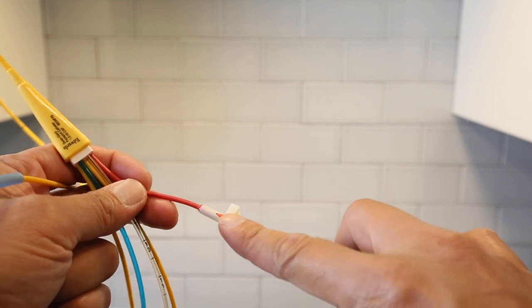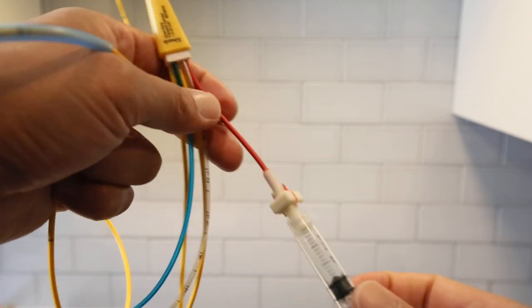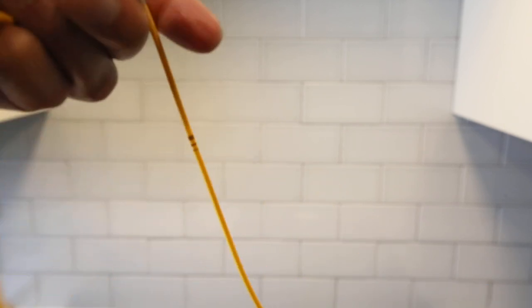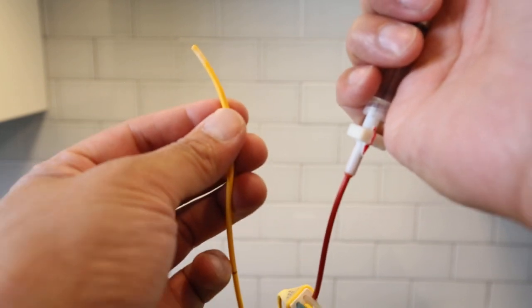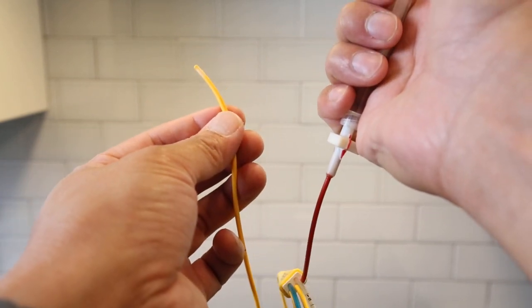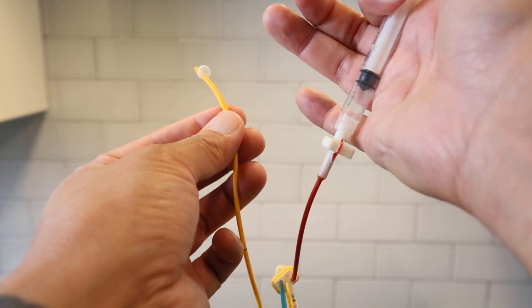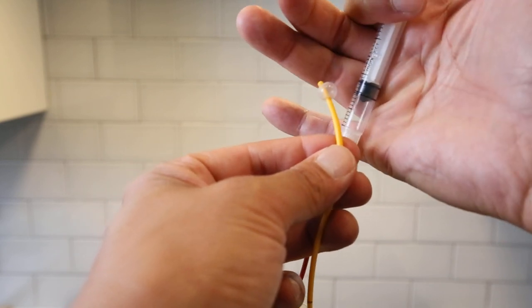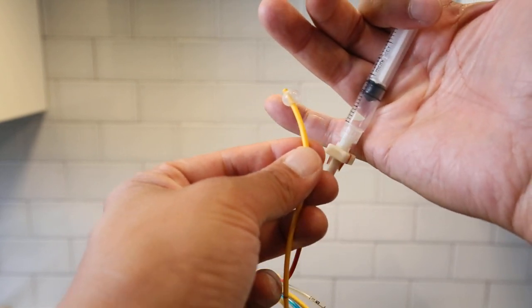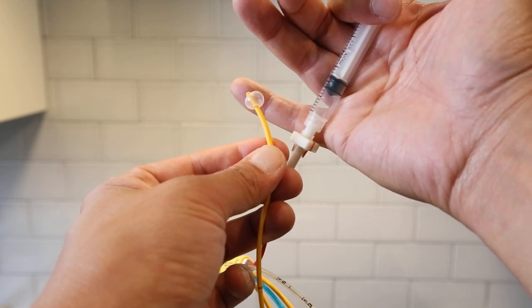This one goes with the balloon. So as I inject, you'll see the balloon pop up. As you can see, there. You see, not even with this much, with only like barely half a cc.